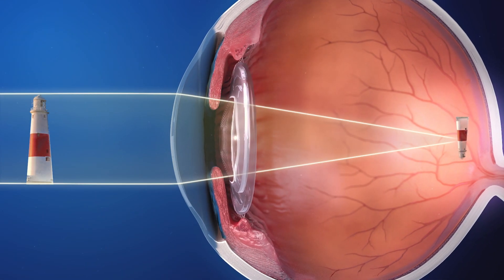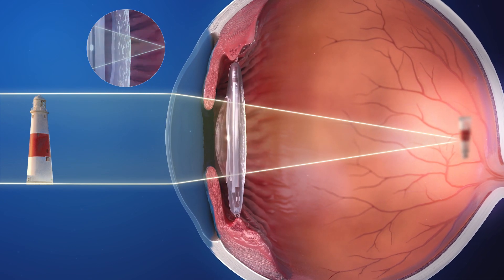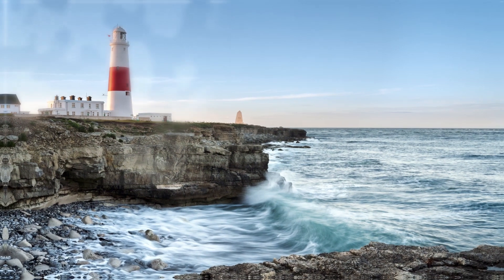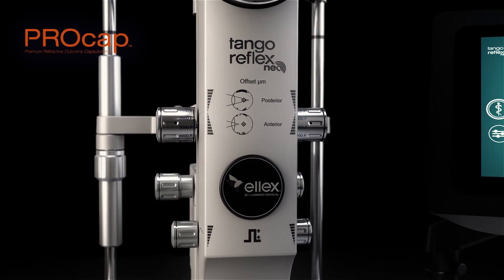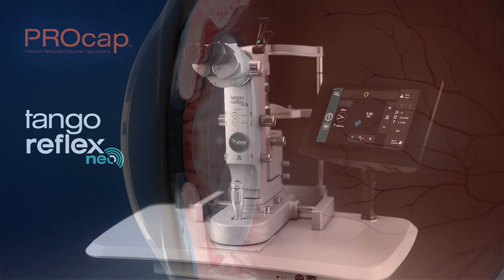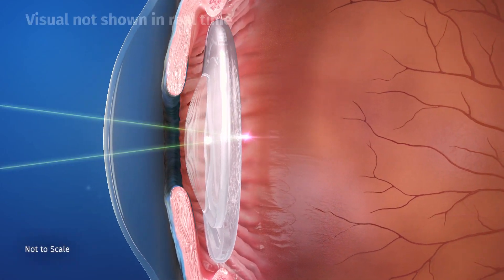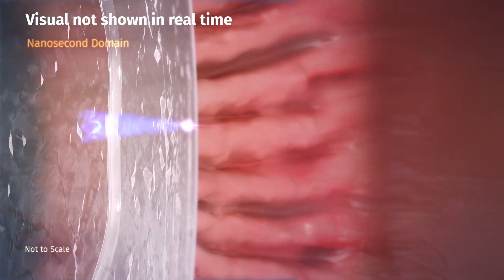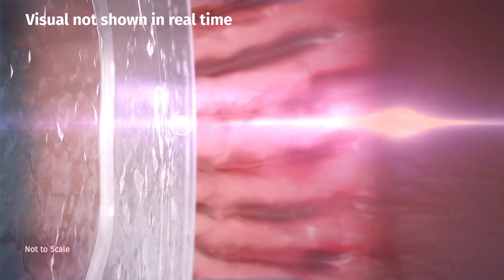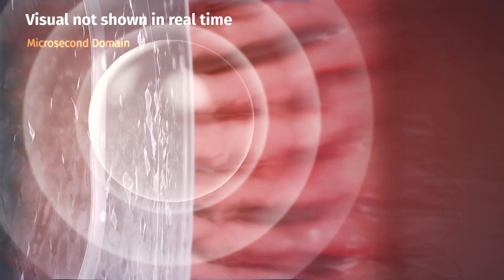Posterior capsule opacification, or PCO, results naturally following cataract surgery, gradually leading to degradation of visual function. To treat PCO, ProCap can be performed using the Tango Reflex Neo. With ProCap, a brief low-energy YAG laser pulse is delivered behind the posterior capsule. Ionization of intraocular matter occurs with plasma formation, causing rapid growth and decay of a cavitation bubble and accompanying shockwave moving towards the posterior capsule.